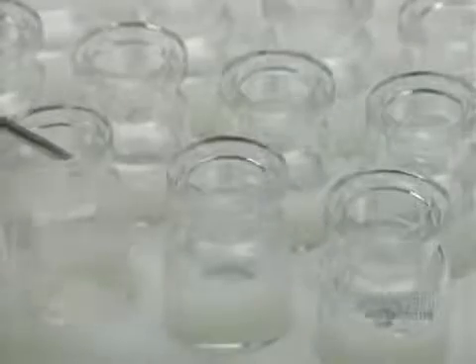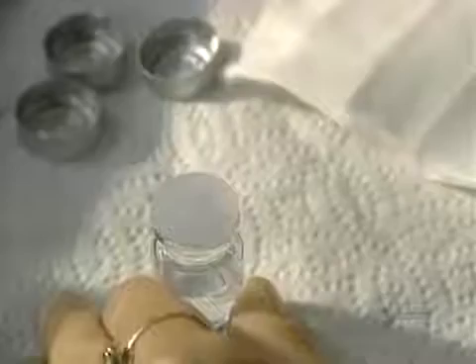Lenses are now completed and are cleaned, and they're stored in containers filled with a salt solution. This little vial that we find at the optometrist is perfectly sealed with a silicone cap and another of aluminum.